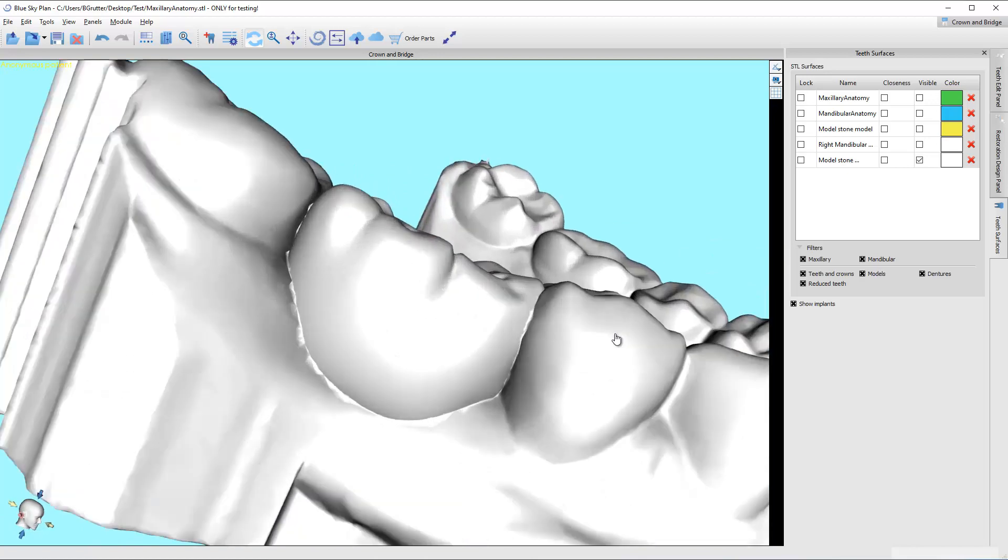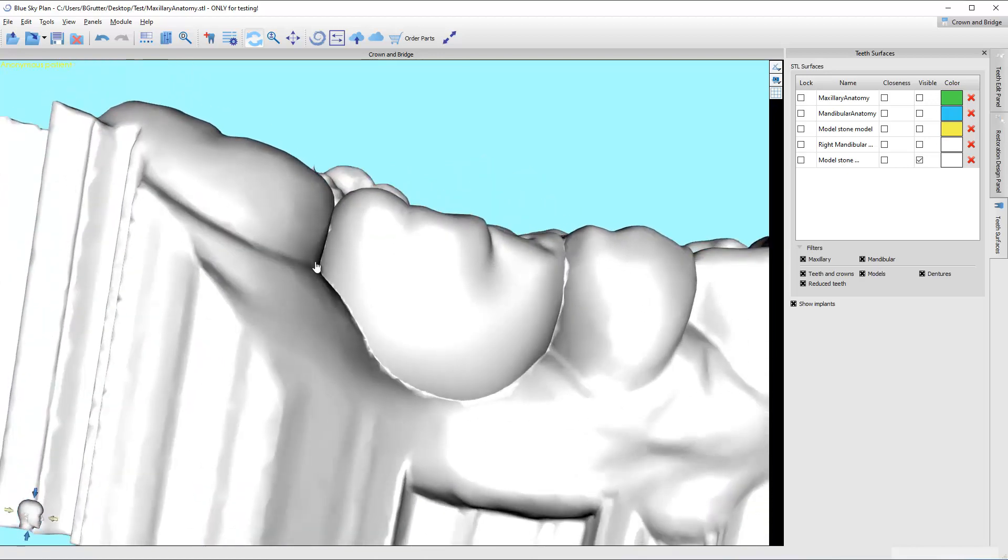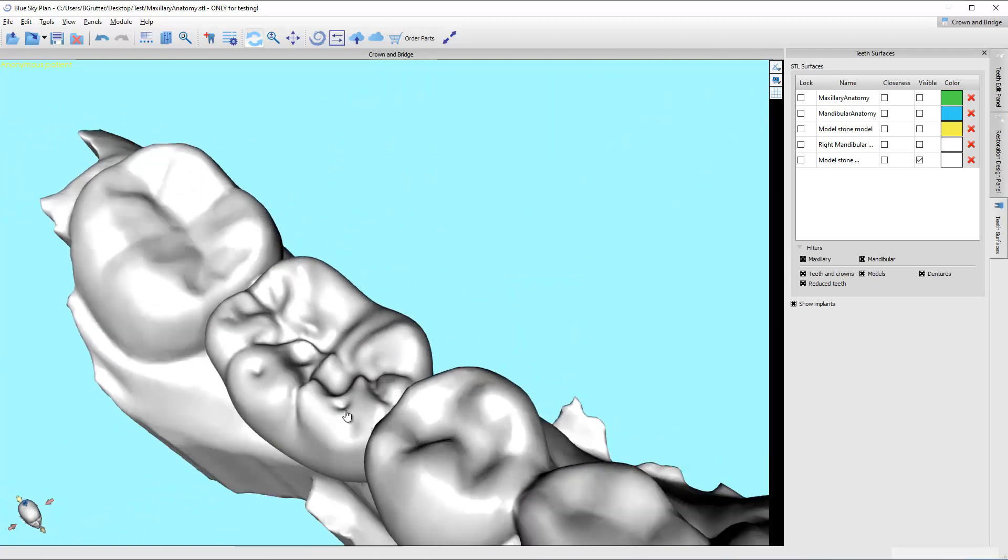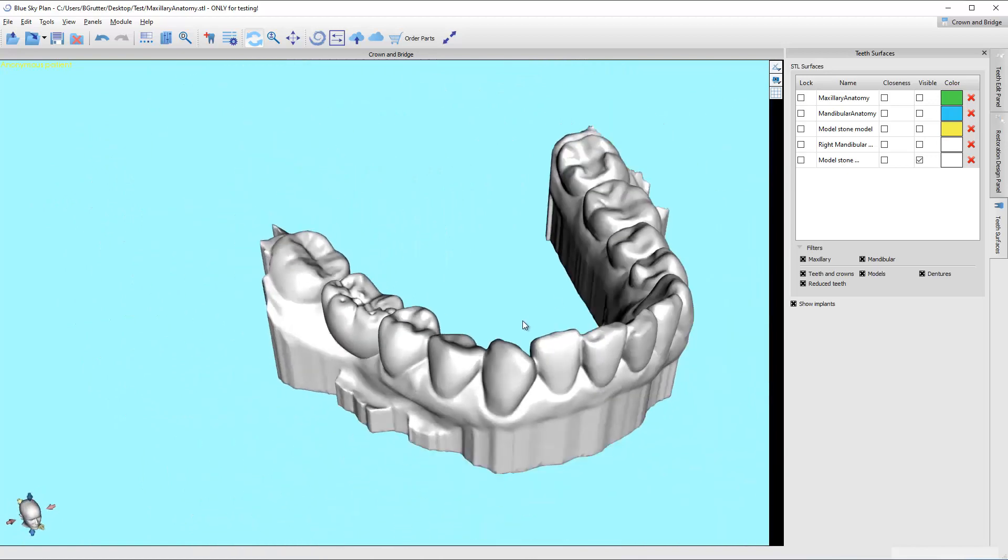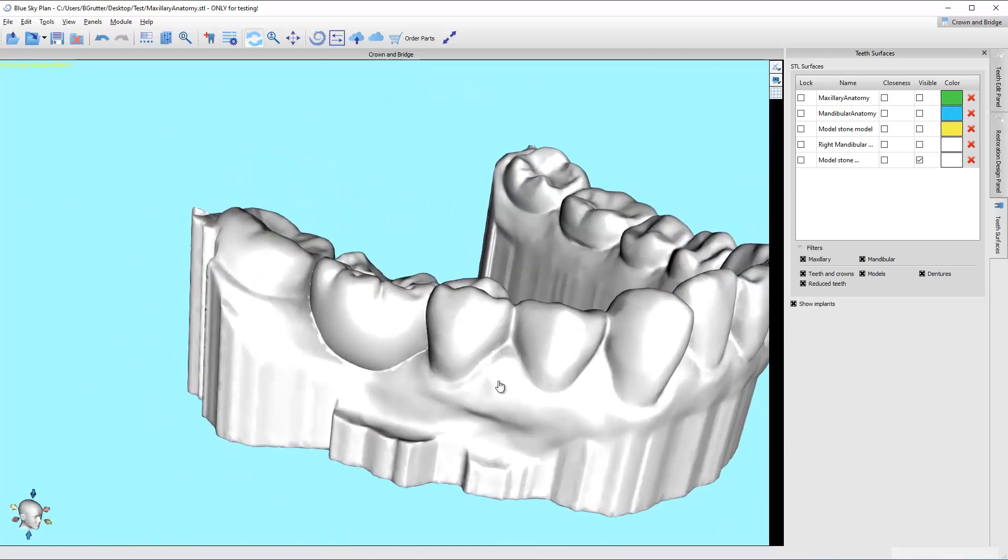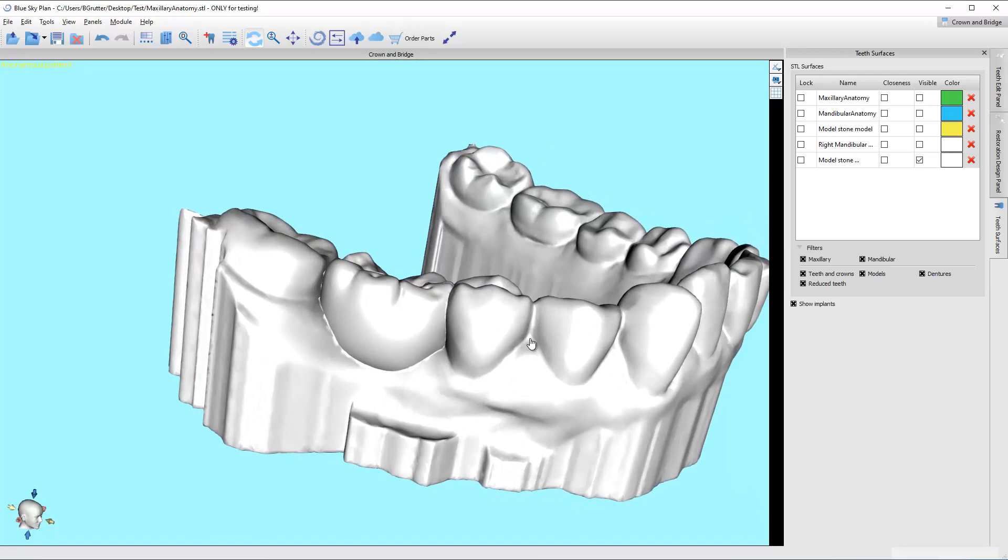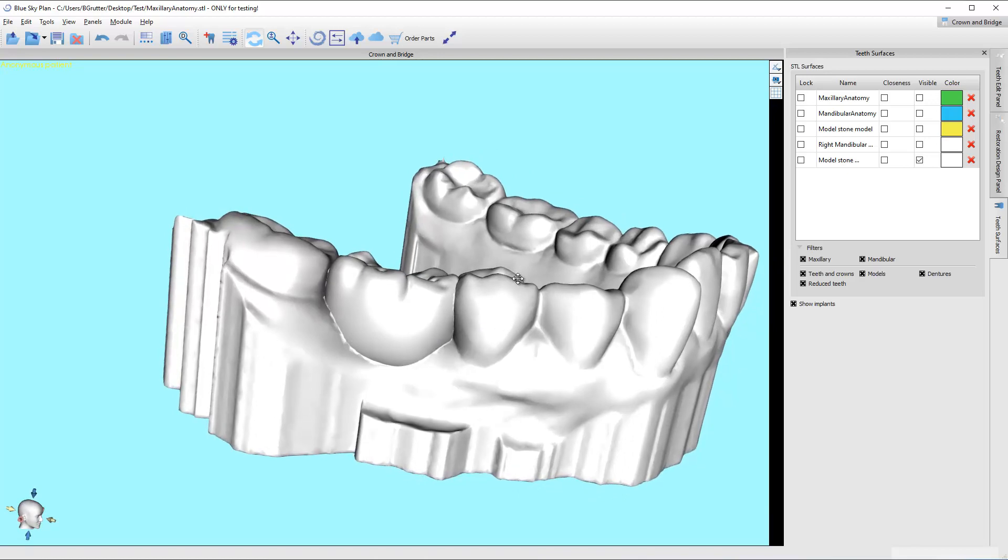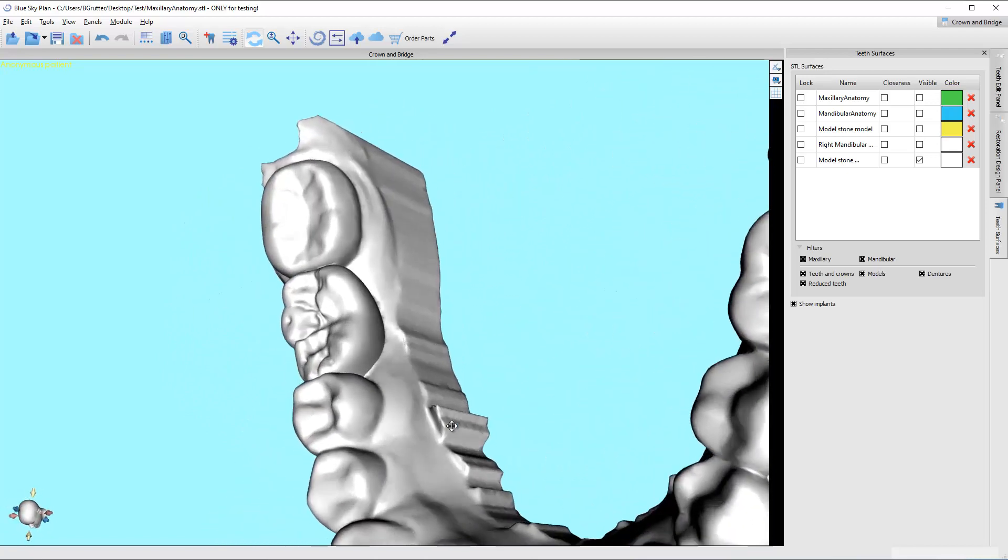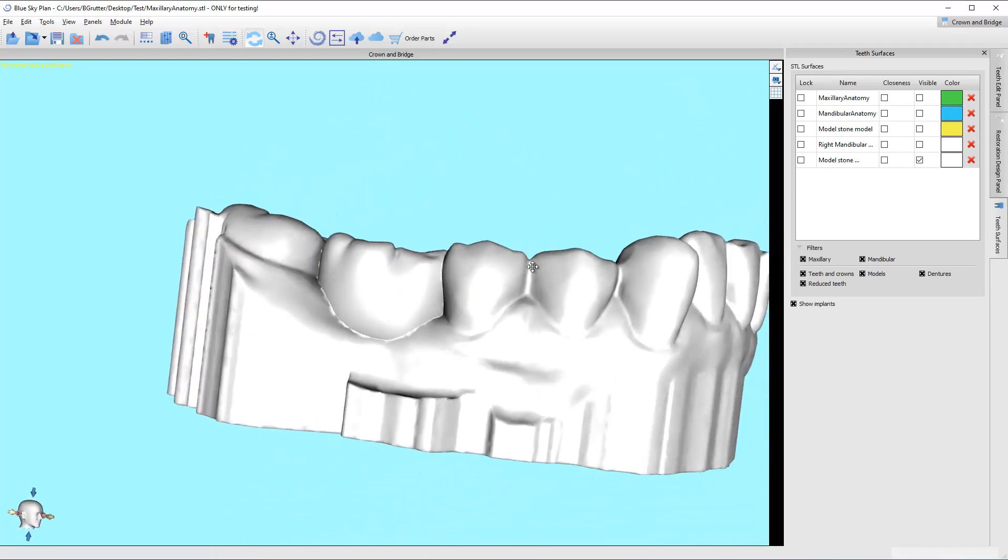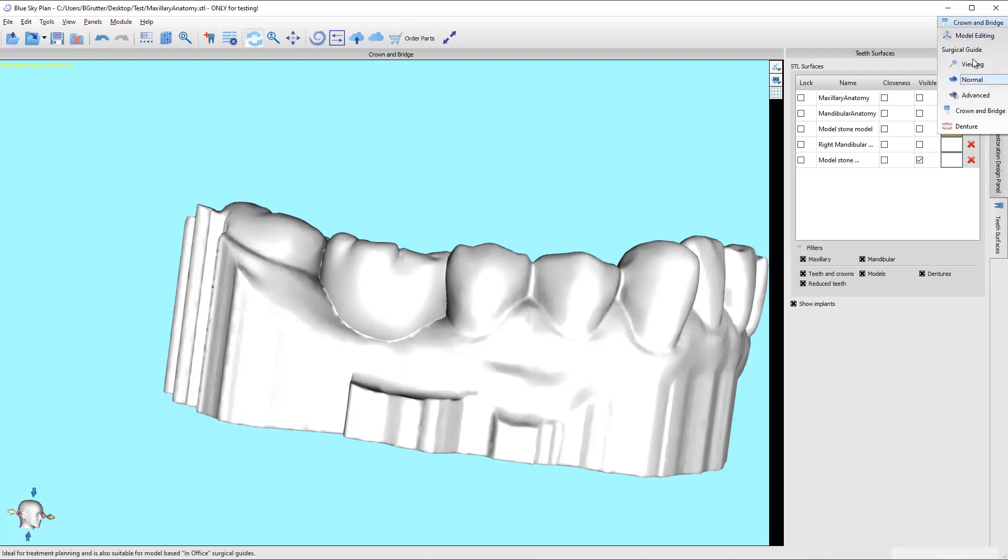Now I can turn everything off, and here's this new model with everything merged. Remember those little spaces I said inside, it gets a little bit dicey in here. But anyway, we've got a model. We could technically export this model right here and start to work on the ortho module. But this next step is going to make your life easier. I'm going to smooth the margin a little bit. I like crisp margins for the software's ability to marginate or to segment out the teeth. But in particular, down here, it's going to struggle because it might literally put our segmentation line inside the model trying to find all the way in those little creases.